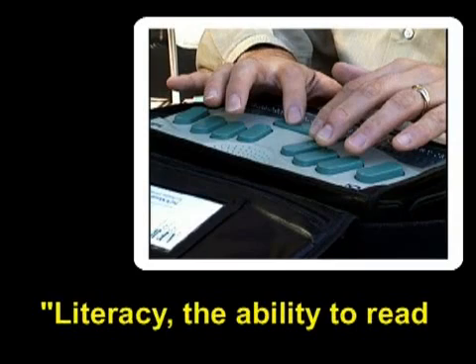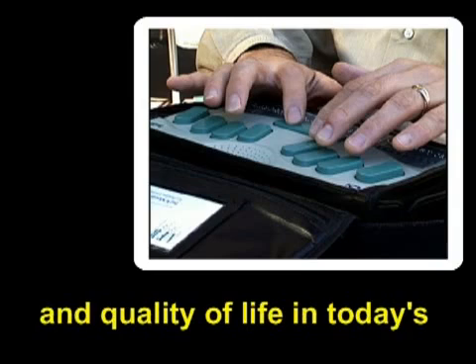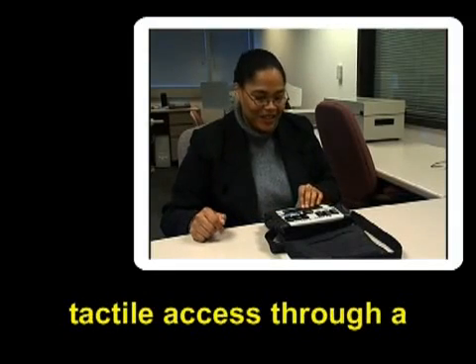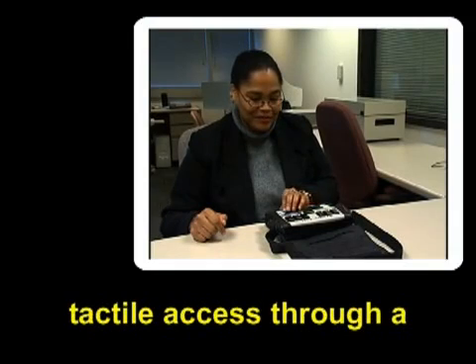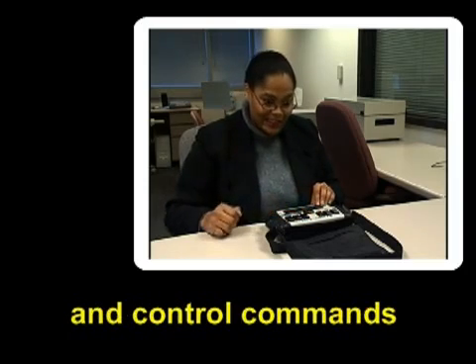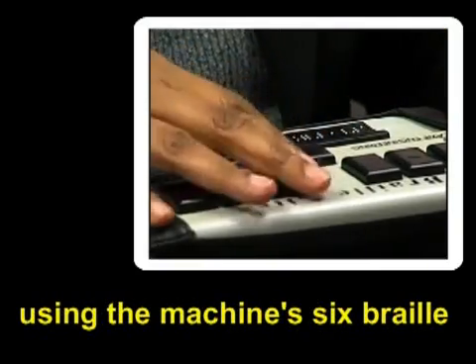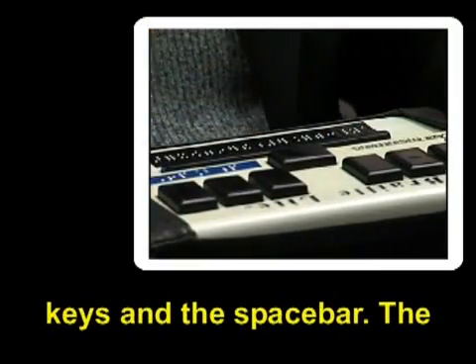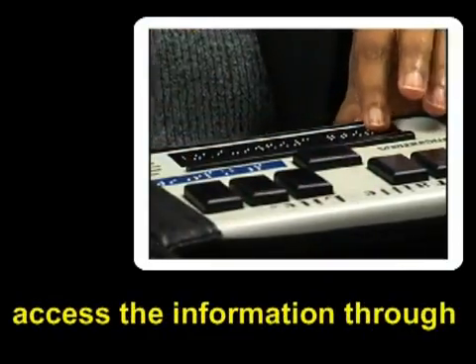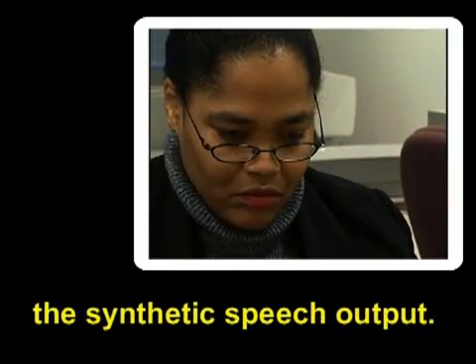Literacy — the ability to read and write — is vital to a successful education, career, and quality of life in today's world. Some PDAs also provide tactile access through a refreshable braille display. The user enters information and control commands through a braille keyboard using the machine's six braille keys and the space bar. The user can then review or access the information through the refreshable braille display or the synthetic speech output.